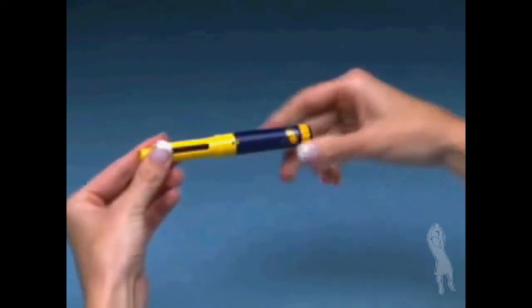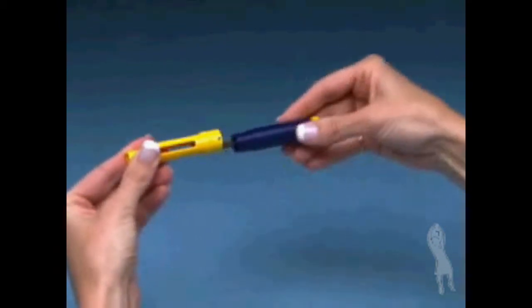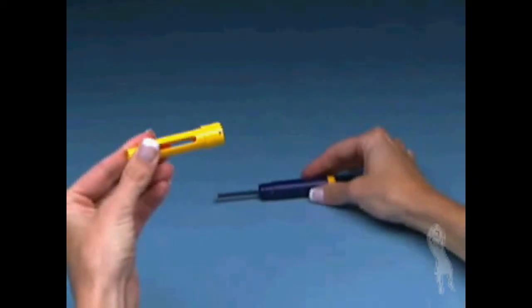Unscrew the entire pen body from the cartridge holder. Place the cartridge holder and the pen body on a clean dry surface.